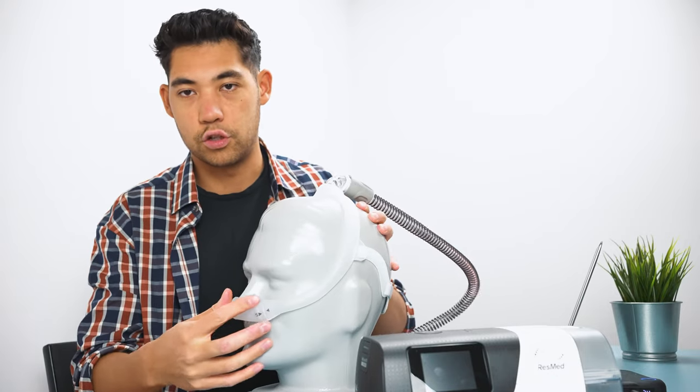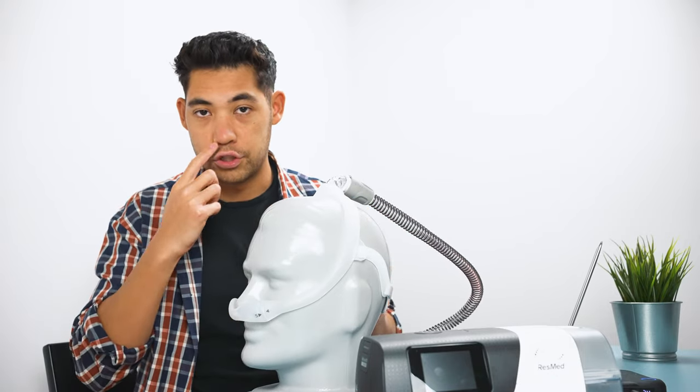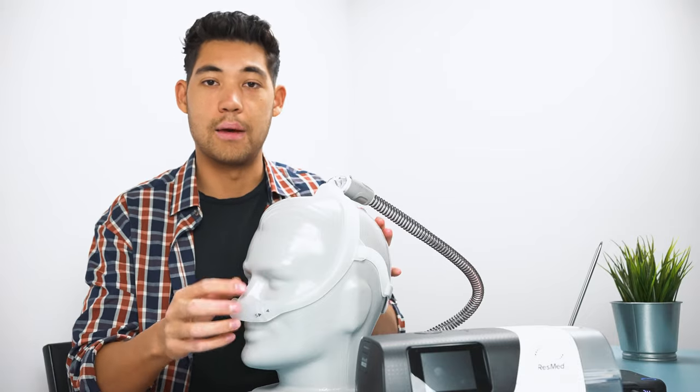Having a cradle for me because I have a very squishy nose kind of forms to my nose quite well, whereas other people might need a mask with pillows.